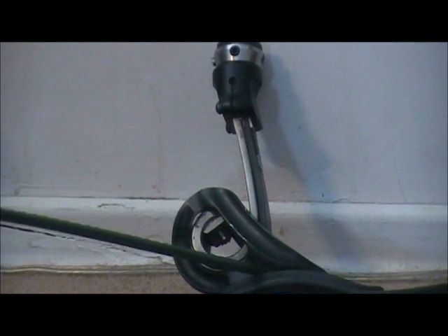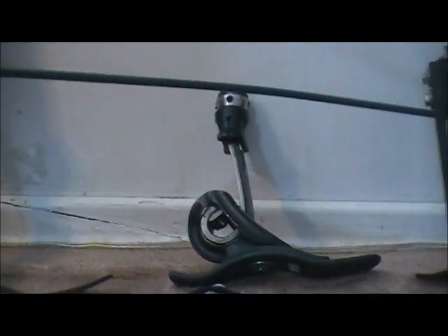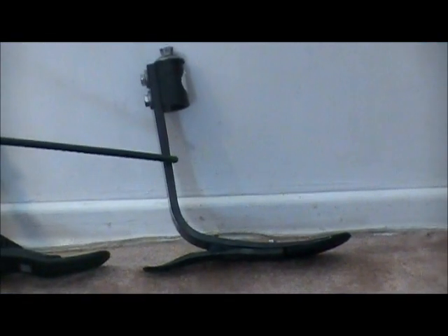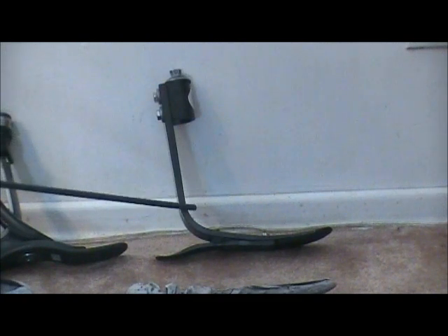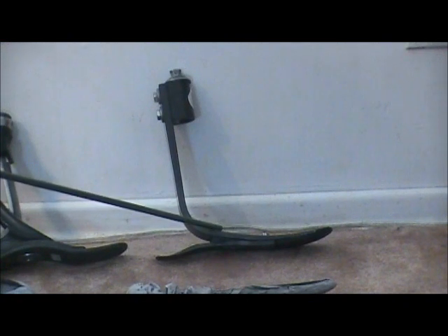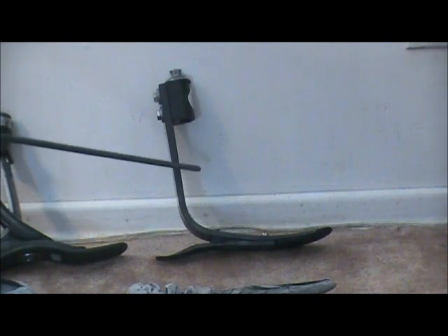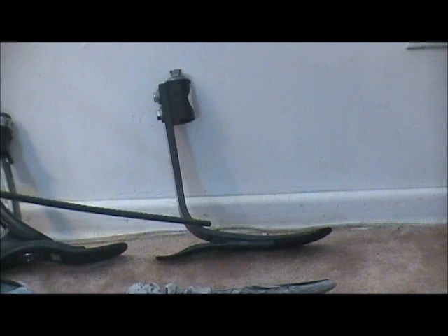It's a heavier foot, but not as heavy as the Ultra Stride — this is the lightest of the three. The shaft here is quite a bit thinner. This foot is good for all-around use, good for sporting use — soccer, running, anything like that. It's a milder version of the straight running foot. Instead of this type of angle, the straight running foot would come more in a C shape to get more spring in your step.